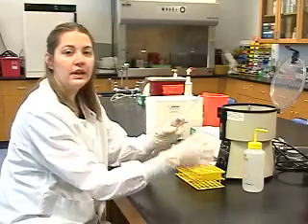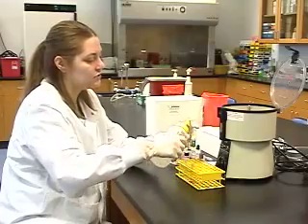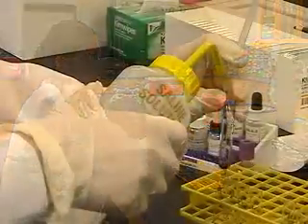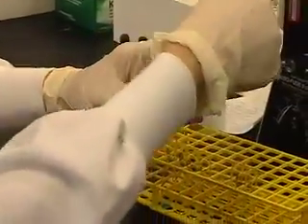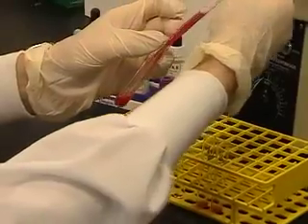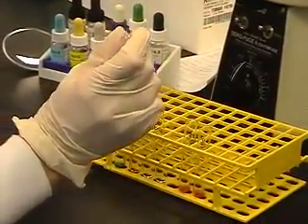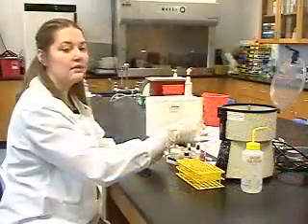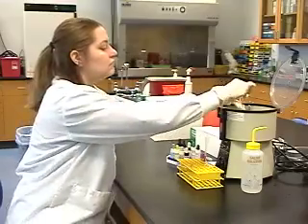We use 0.9% saline to dilute the red cells to a 3% concentration. And now add 1 drop of this cell suspension to each of our forward and RH tubes. Give the tubes a little shake and centrifuge for 15 seconds on high speed.